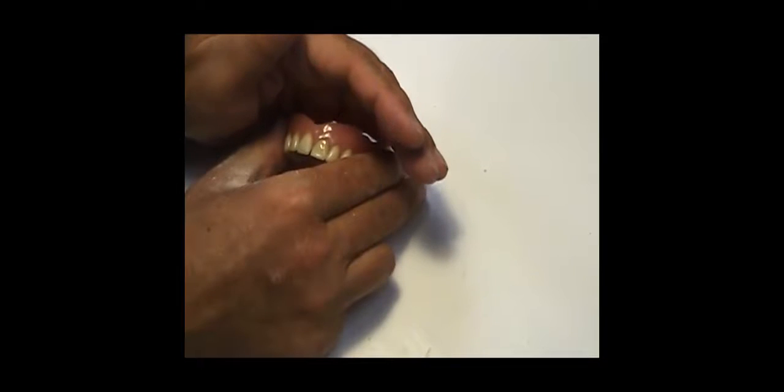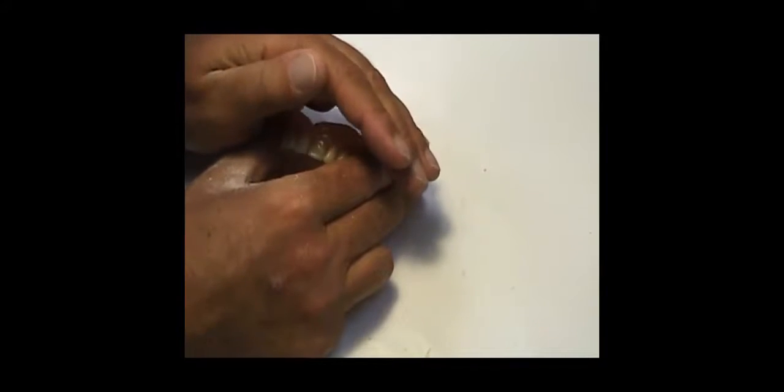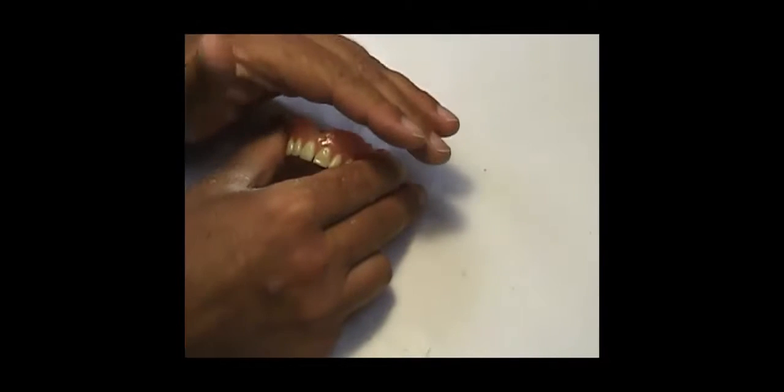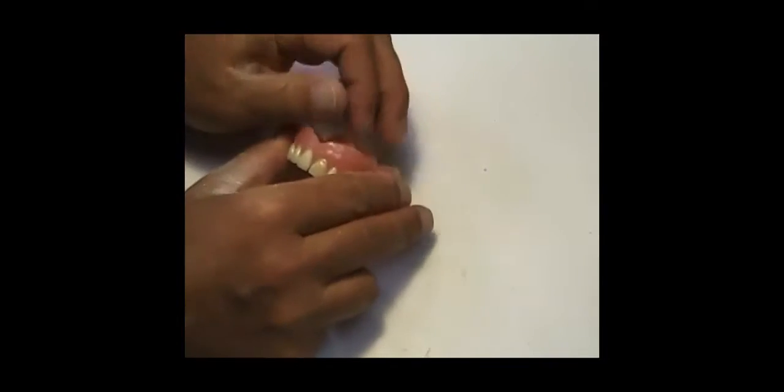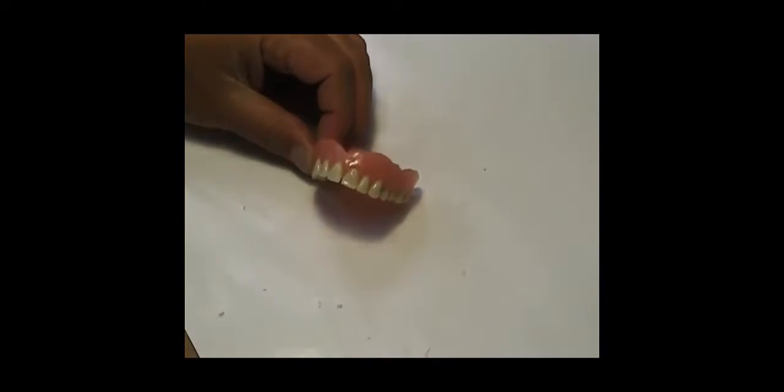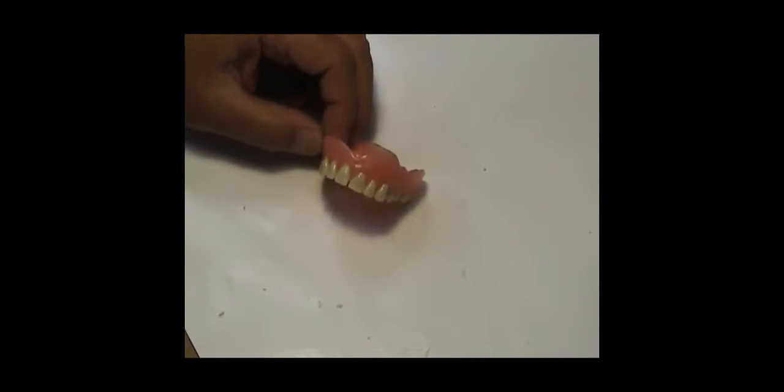You always have to look at things in the shade because most of the time the teeth are shaded from the top unless they had a hole in the back of their head. By holding it up you can shade the gingival third and get an idea. At that point it doesn't look any different. That's it - done with it and out the door. 48 minutes to cure and then I began finishing.